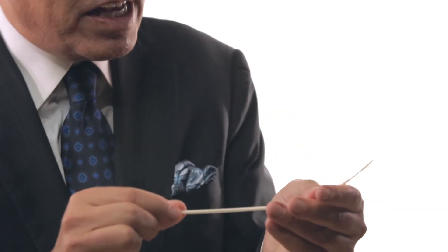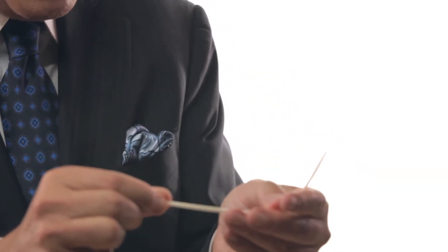And finally, this catheter has memory. By having memory, we can easily place the catheter into the most difficult antero or retroflexed uteruses. Translation: less pain, greater success.